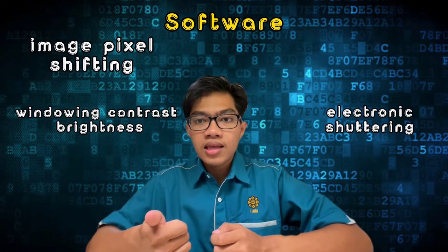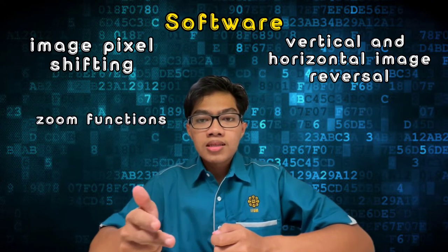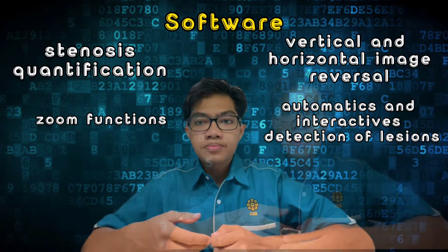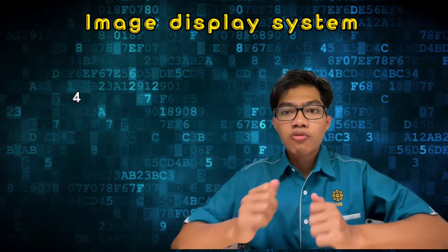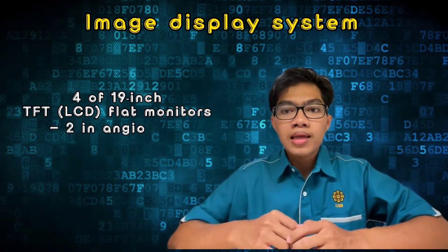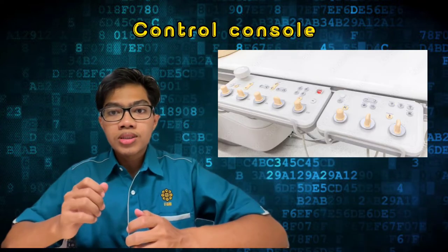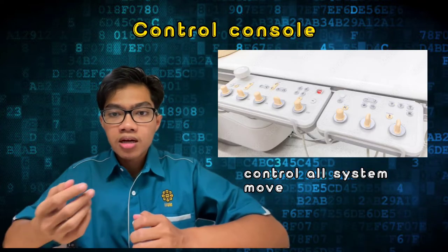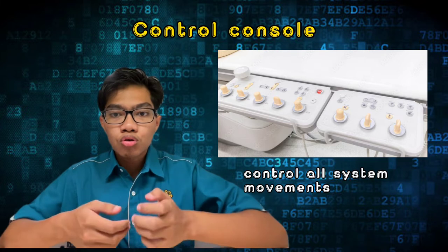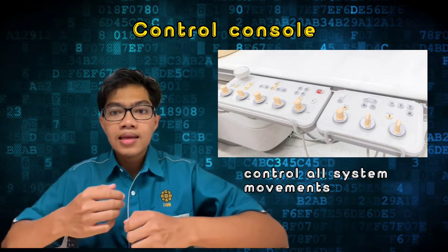Additional software features include electronic shuttering, image pixel shifting, vertical and horizontal image reversal, zoom functions, and automatic and interactive detection of lesions and stenosis quantification. The image display system consists of four 19-inch TFT flat monitors — two in the angio room and two on the console for live and reference image display. The control console includes all system movement controls for the C-Arm, table, image display, image review, image post-processing, and quantification, operated both at the table in the angio room and in the console room.